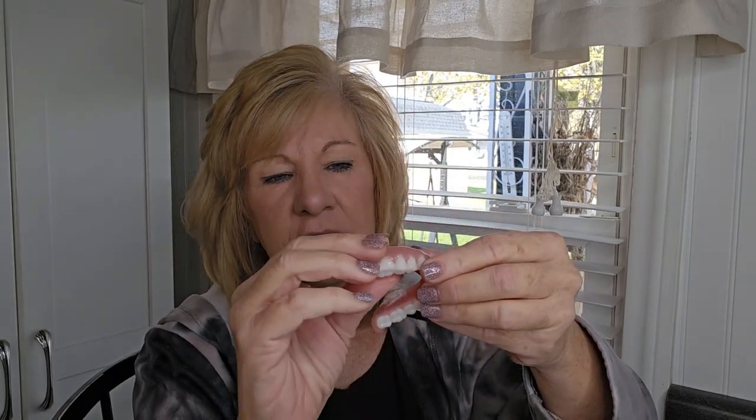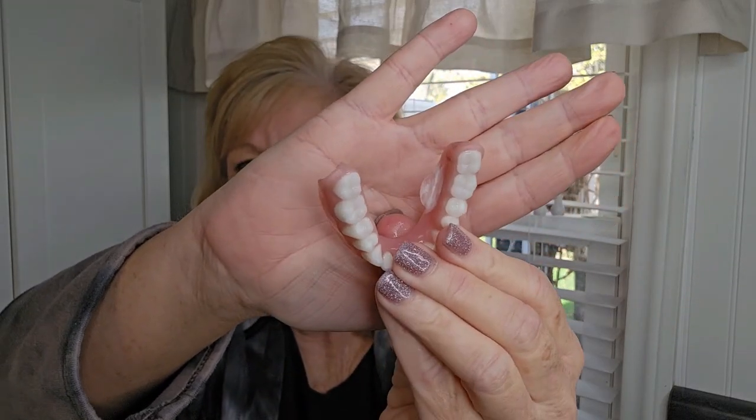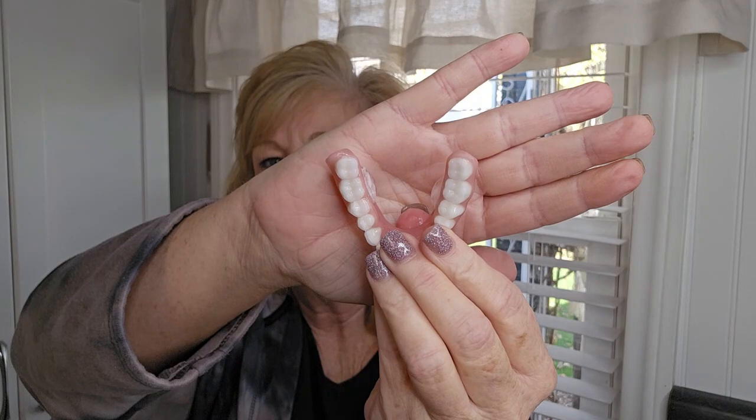Okay, we're back. So this is what we have — this is just my test denture from Denture Box. There you can see it — there's that side, and there's that side. It's on there. It created a fullness, I can tell you that. I don't really know if I needed that stability, because my denture fits really good and they said you needed a good fitting denture.